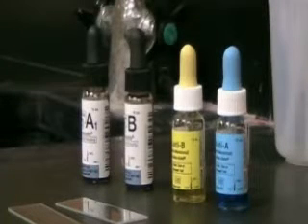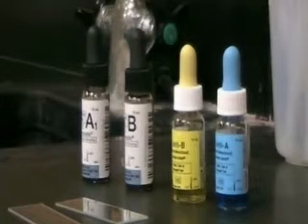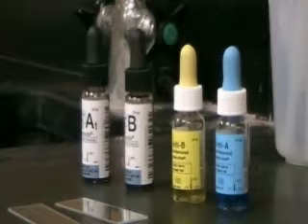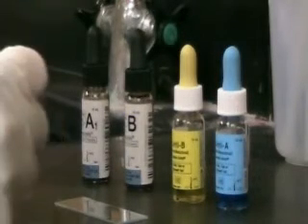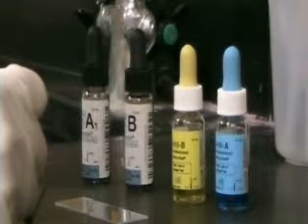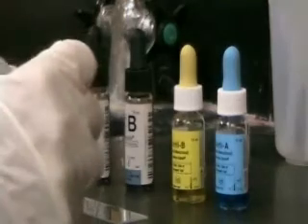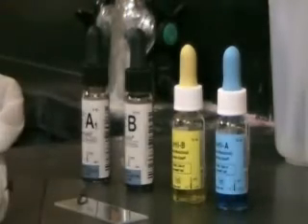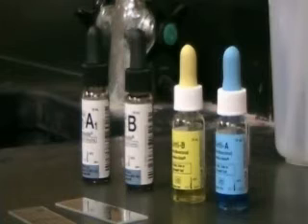Hemagglutination Procedure. In this video, we will look at hemagglutination, or the agglutination of red blood cells. We'll use anti-sera, which contains antibody, and red cells, which have the antigens on their red cell surface. Let's begin by looking at how red cells and antibody combine to form agglutinates.